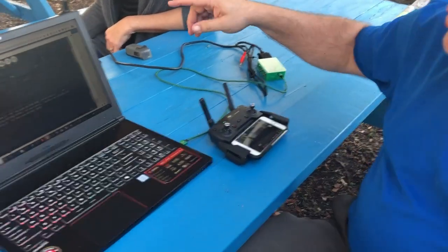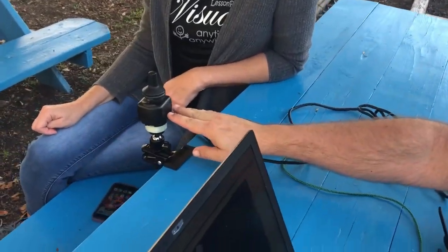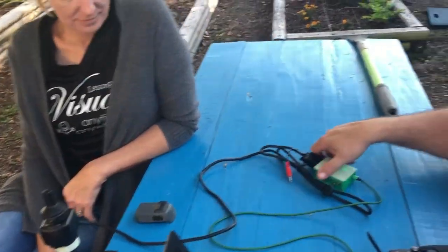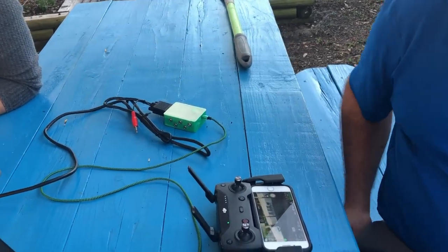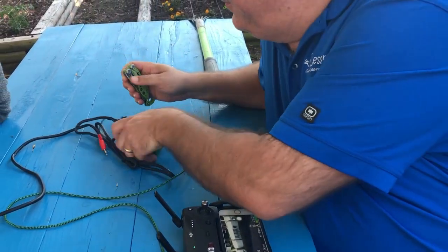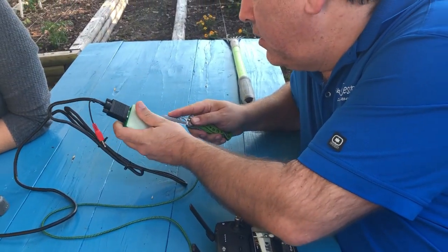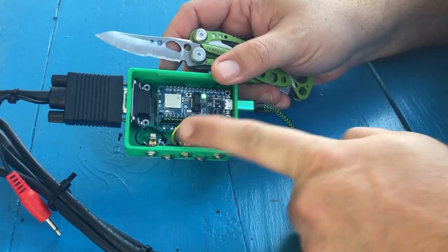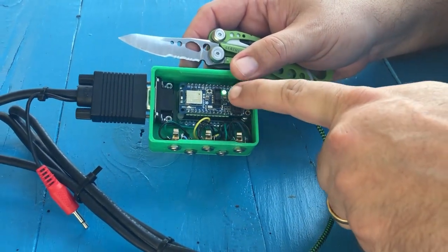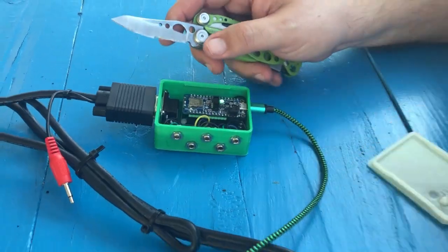Here's a video that Bill recorded earlier that demonstrates how the Freedom Wing connects to his iPhone to control the drone. So this is a power wheelchair joystick, and this is going into the Freedom Wing that converts power wheelchair joysticks into input for a feather. This is an NRF52840 feather, and a few jacks that we use for other things. And that is connected as a keyboard to my phone.